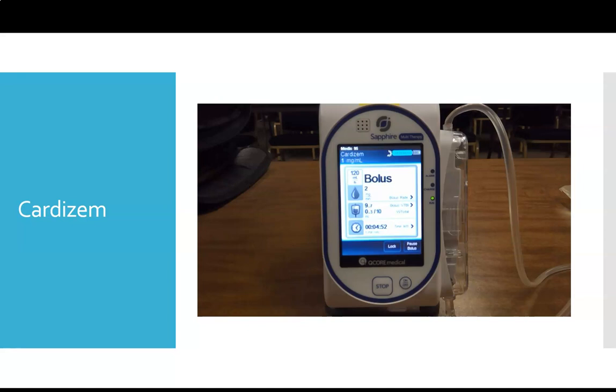And we never want to hang Cardizem and go in the general mode on the pump. If we were to go in the general mode on the pump with a Cardizem bag hanging, that takes the safeguards out. 100 milligrams of Cardizem is quite a bit of Cardizem to have hanging without any of the medication library safety net in place.